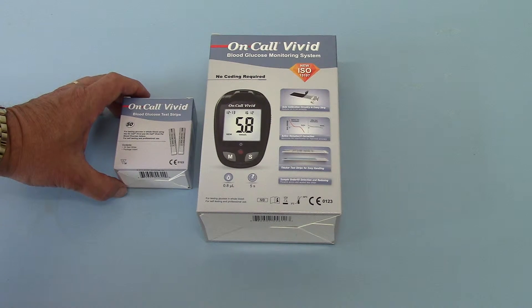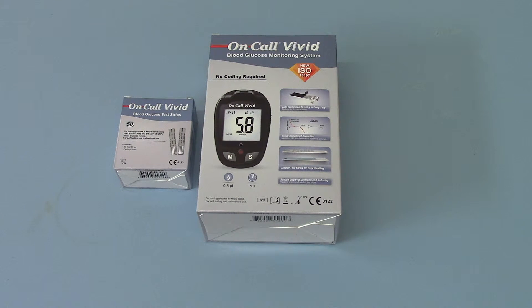We are marketing these to the UK market, targeting Type 1 insulin-dependent diabetics — the type of diabetic who is dependent on accurate glucose readings to determine their insulin dosage, and who may be testing two or three times a day and having issues with ketones and other problems with their glucose control, where they are really dependent on maintaining an accurate ability to screen their glucose on-site to avoid complications of unstable diabetes.